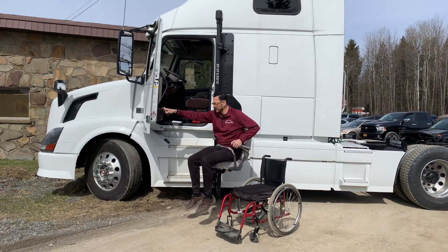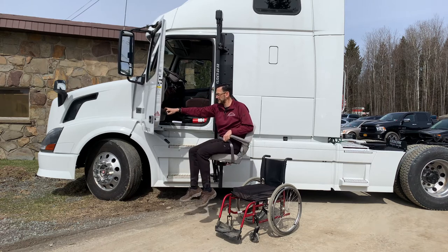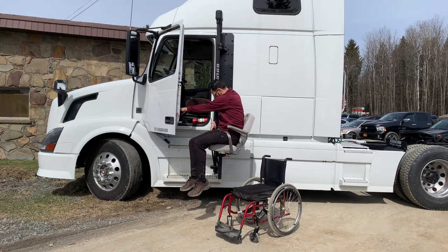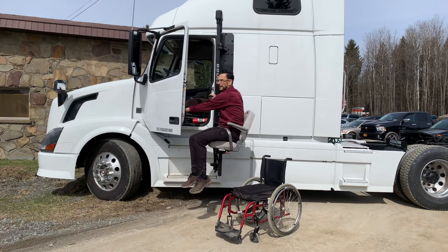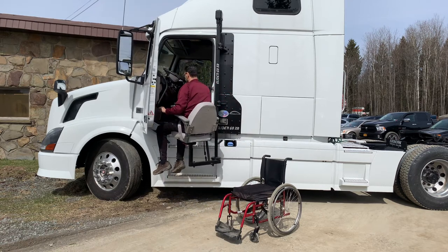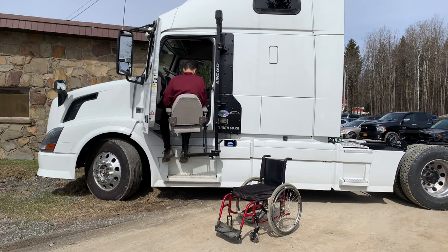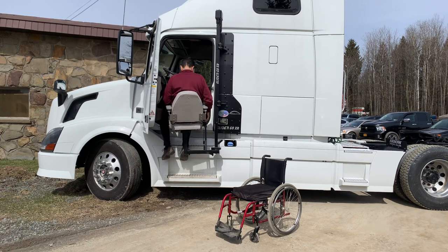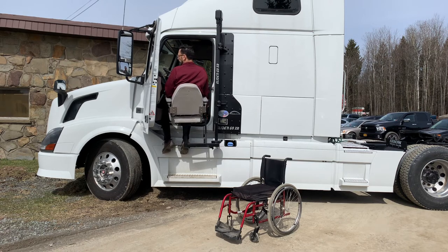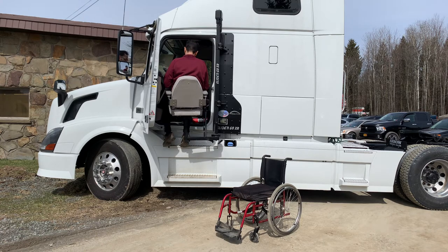Once we're up and moving, you're going to face around. You've got a locking mechanism right under here that'll lock you in place. Get the locking mechanism to a 45-degree angle and you can move. Here we've got an extra lanyard. Once you get up to an appropriate transfer height where your seat's level, you're going to get the legs in.